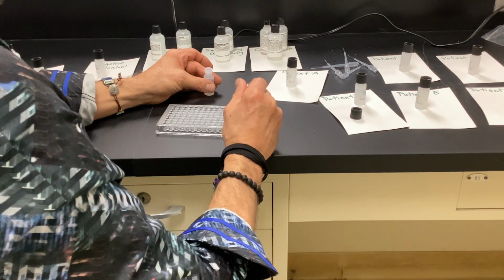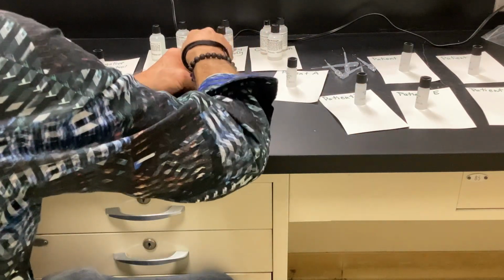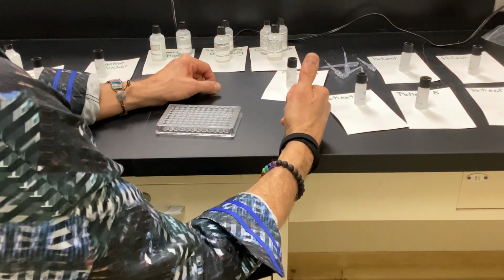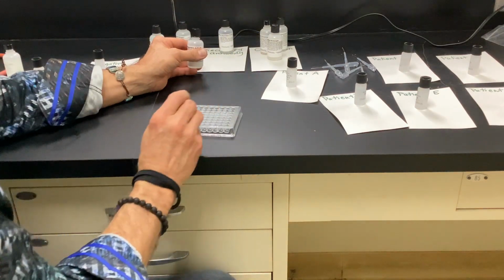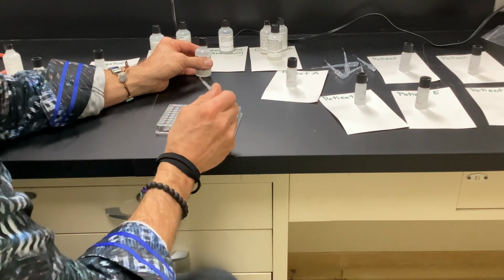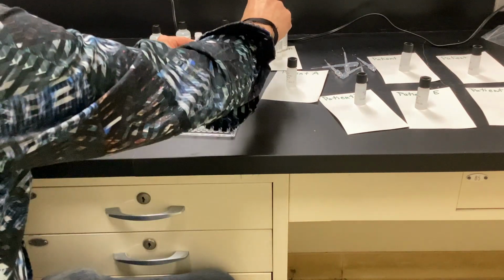All right, so what did I put in each well initially? So, yeah, 3 drops of antigen. Okay. So I put all the patient serum in there. Now I should be doing a secondary. Why am I doing the secondary again? So it can bind. If the patient has the antibody, it's attaching to the antigen. Now, if they're positive for it, there's an antigen-antibody reaction in the well. But it's not big enough, or the chromogen, the color won't attach to it.